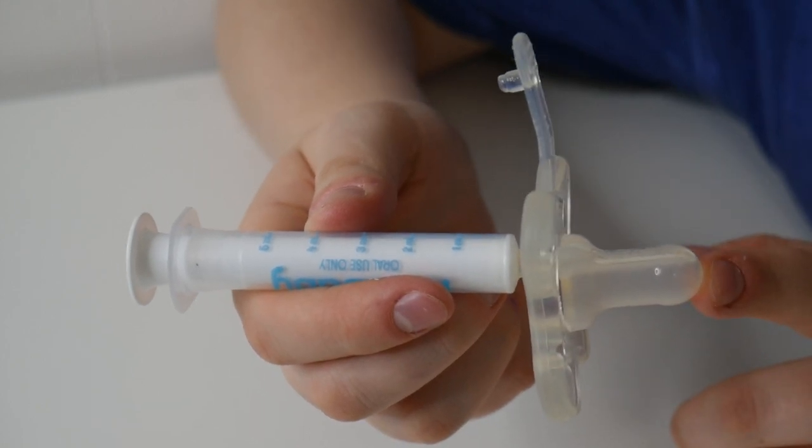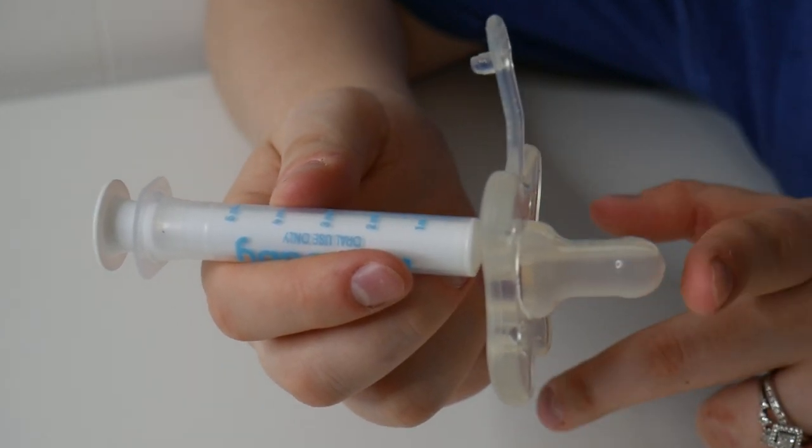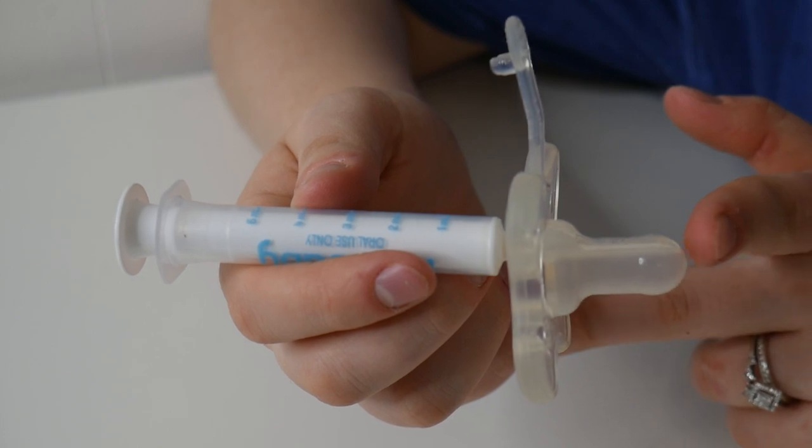The nice thing about this Frida AccuDose Pacifier is how convenient it is to use. It has a no-mess design, as you can easily dispense the medicine into the side of your baby's cheek. They don't easily spit it out.